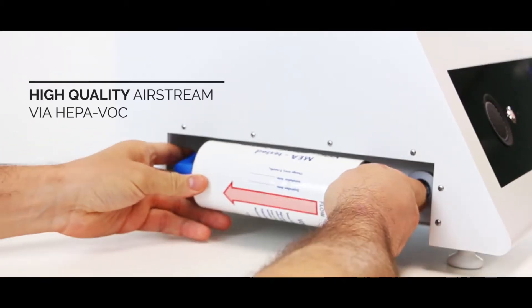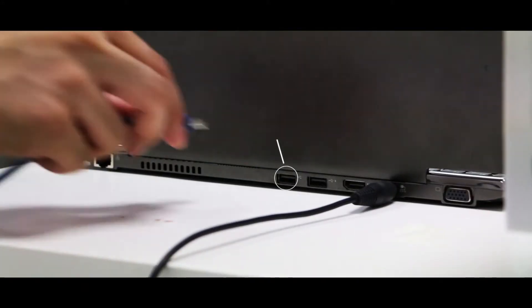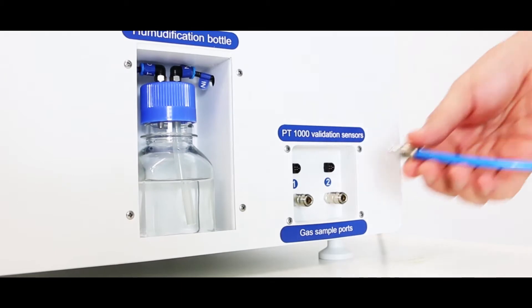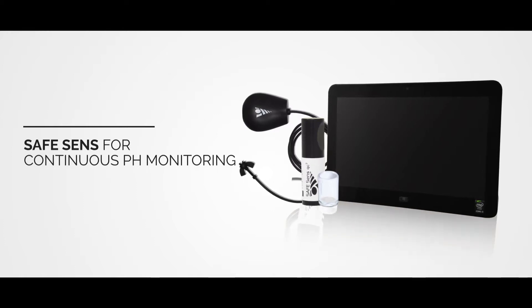With MiniMiri, you wouldn't have to worry. It has excellent quality control features to complement your IVF routine processes. It can be connected to a PC for data logging of parameters, validation ports for external parameter validation, and optional SafeSense integration for continuous pH monitoring.